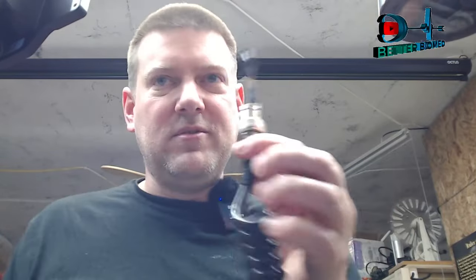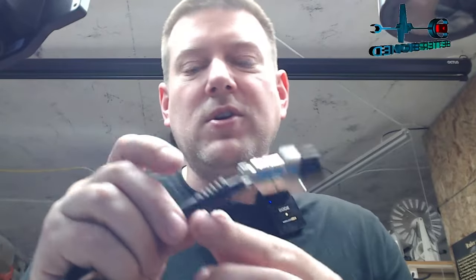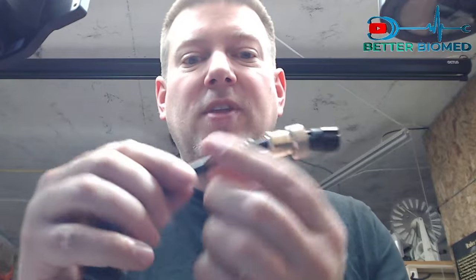I just wanted to show you a quick how-to when it comes to these cables. Remember, alcohol — rubbing alcohol is a very versatile tool, especially when you have shrink tube or strain reliefs that you have to reposition. Now after the strain relief is done and the repair is done, I'm going to slide it back to its position, and then what we do is take something called weather stripping adhesive, put it around the cable, slide it back into place, and let it cure for 24 hours. Weather stripping adhesive is some nasty stuff — it's naturally black, and if it gets on your skin or clothes, it is not coming off. It adheres very strongly, and it's one of the most versatile adhesives you can use as a biomed, but remember it's permanent — the only way to break that permanence is heat.